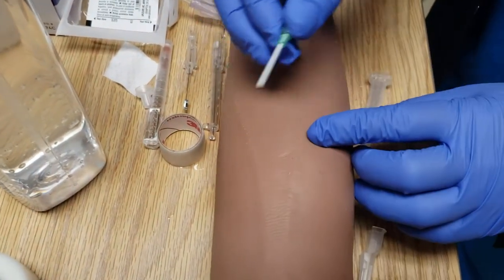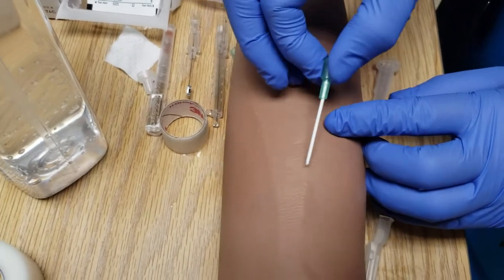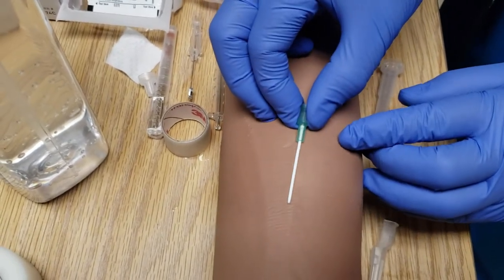I want to show you what I was talking about when I tell you to occlude the tip of the catheter. Think of this as being in the vein and it sits like this.